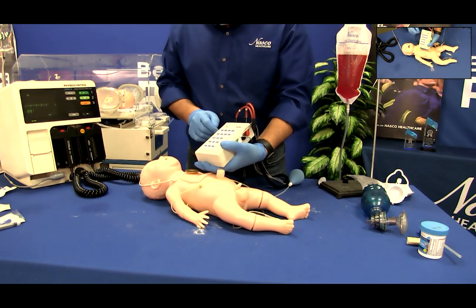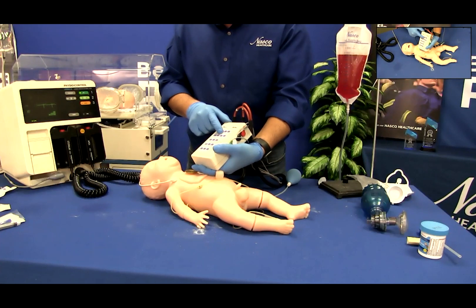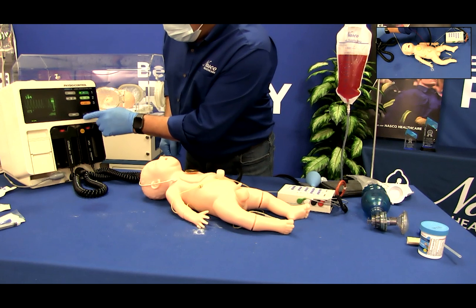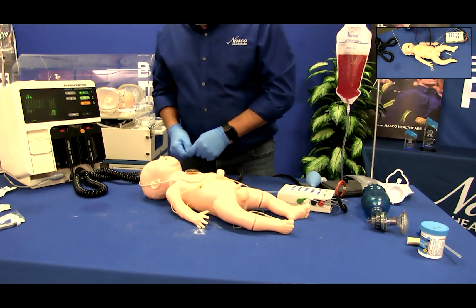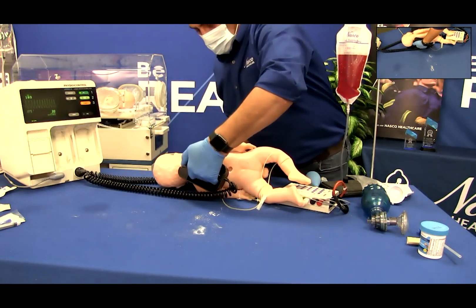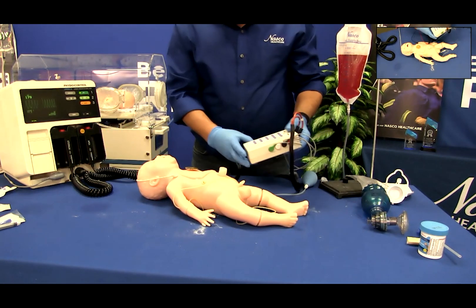To convert, select the initial rhythm to display and then press the convert button. Select the rhythm to display after conversion — this rhythm will be blinking. Shock the manikin using industry standards for infant defibrillation; 20 joules of energy are enough to convert and do not go over the industry standard. After shocking Charlie, the blinking rhythm will turn solid on the interactive ECG simulator and will be the rhythm displayed on your defibrillator or monitor.